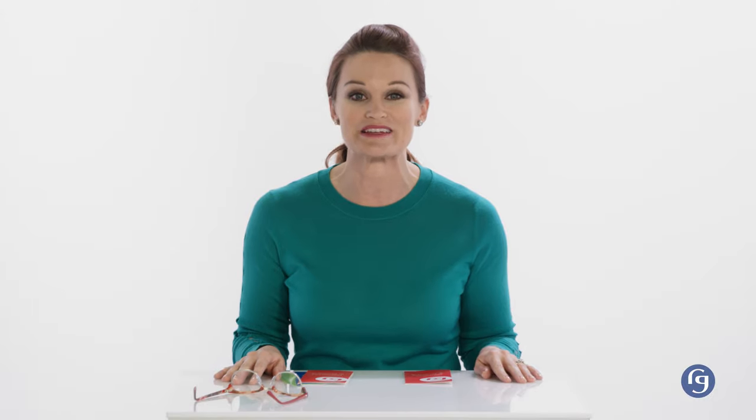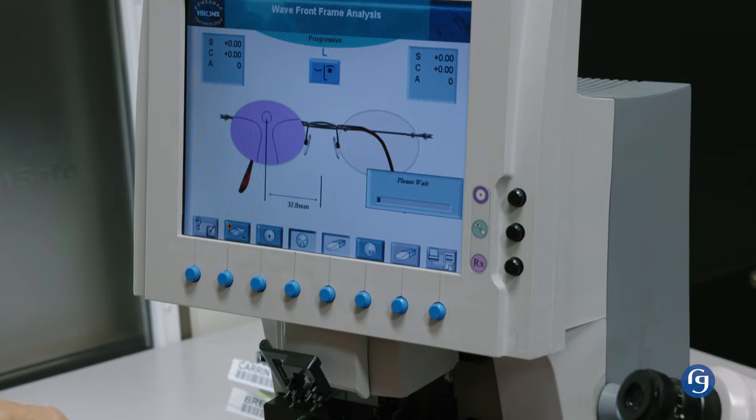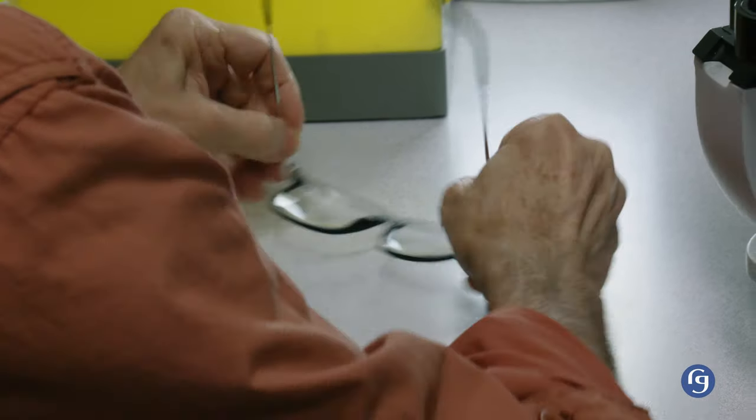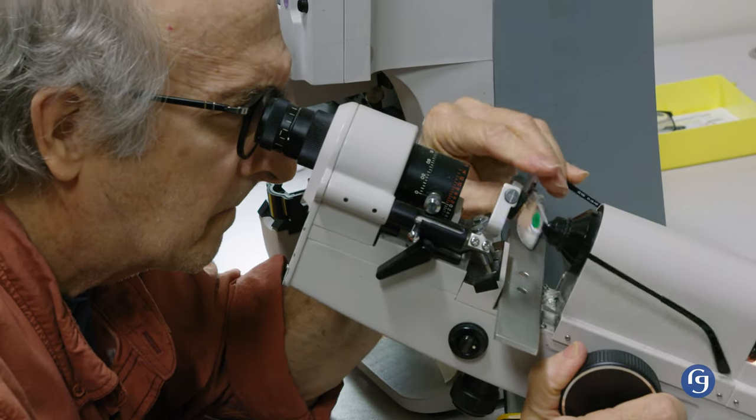Hopefully they'll be perfect right out of the box, but sometimes the smallest tweak and adjustment can make a noticeable difference. Your glasses have made their journey from our warehouse where they passed our 24-point inspection by our lab team, including a 4-point alignment, nose pad calibration, lens alignment, and power verification.